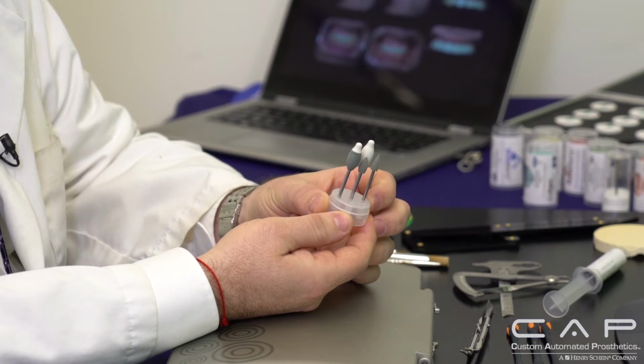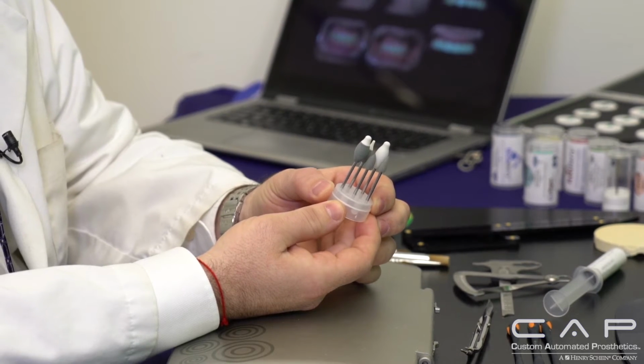Because the way you contour them in the pre-sinter state, in the green state, will really determine the way the end result will be. So looking at nature and looking at what a natural tooth is, there are concavities that have a little bit more of surface texture, and then there's high spots that should be well rubber wheeled and polished. Same do I do in the green state, and then I follow it up in the stain and glaze. But that's how you get the surface texture and the surface resemblance of what a natural tooth is.